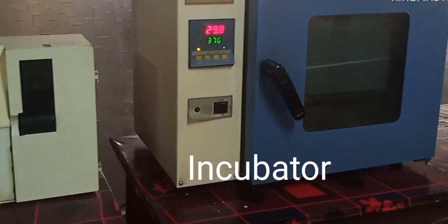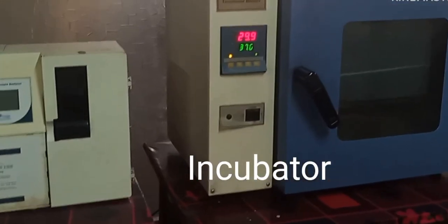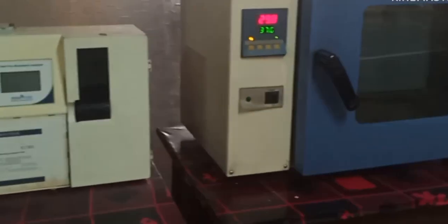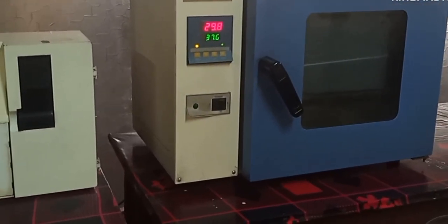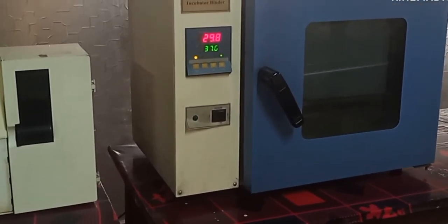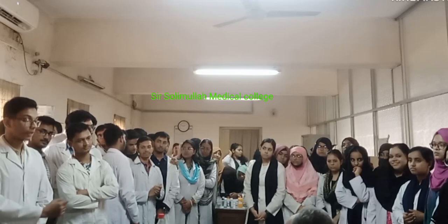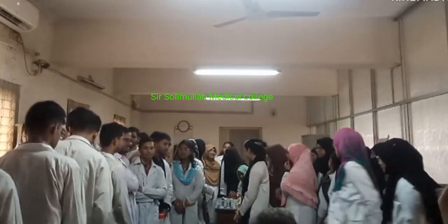And the last one is the incubator. We incubate reagent or other mixed solution at a fixed temperature for a fixed time. Do you have any questions about this class or the instruments? Thank you so much.